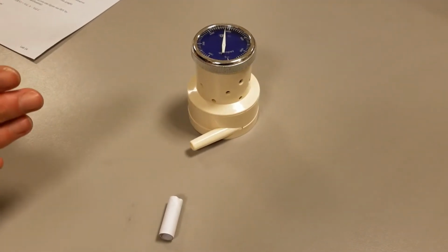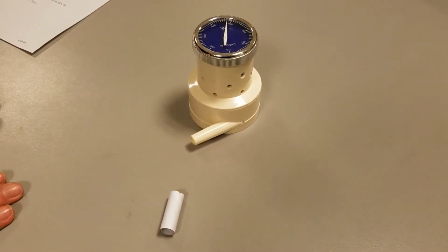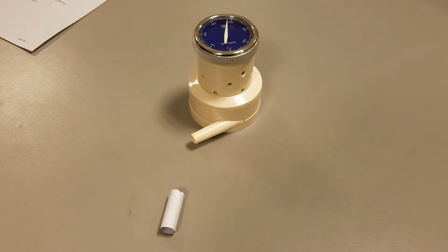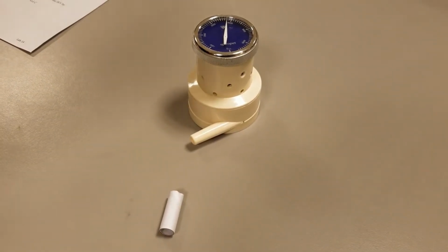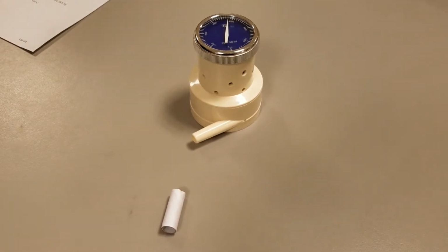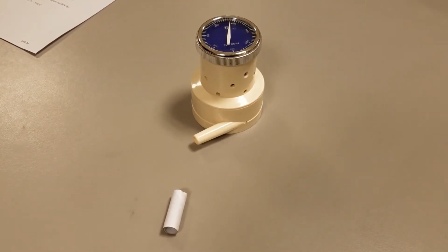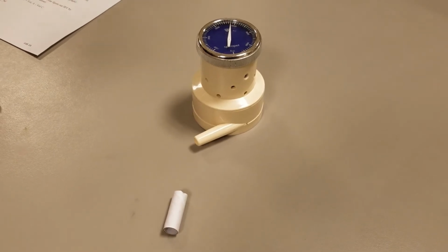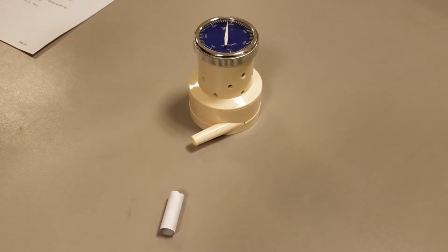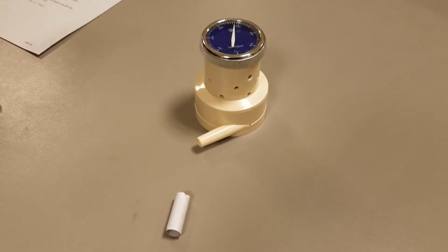So now we're going to measure various lung volumes, and we need this equipment. This is known as a spirometer. This type of spirometer can only measure your exhalation. So in other words, you can't breathe in and measure any volumes. You have to blow out through it. Another limitation of this type of spirometer is that you can't just blow gently through it. It won't pick that up. So it's going to be pretty forceful exhalations that it's going to pick up the measurements on.